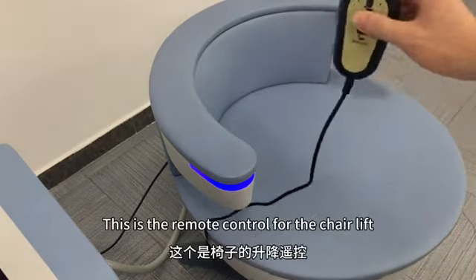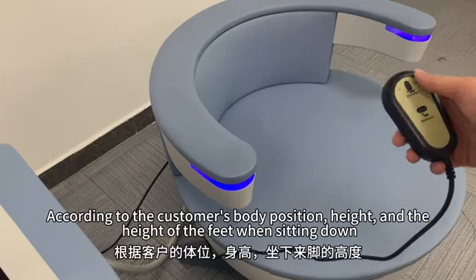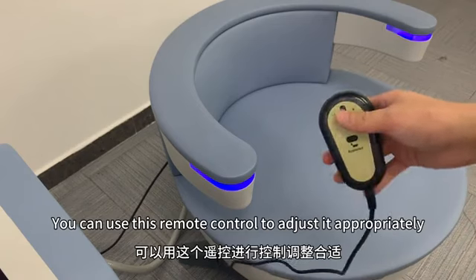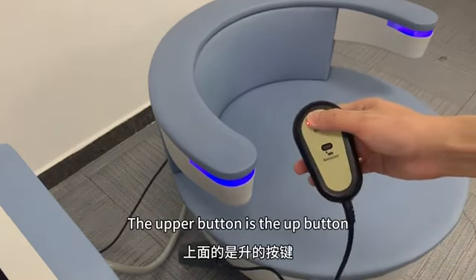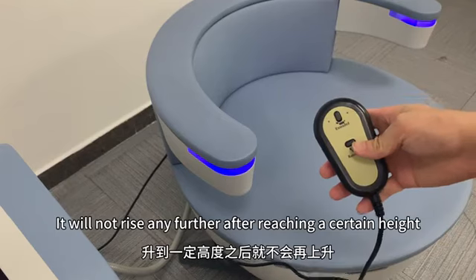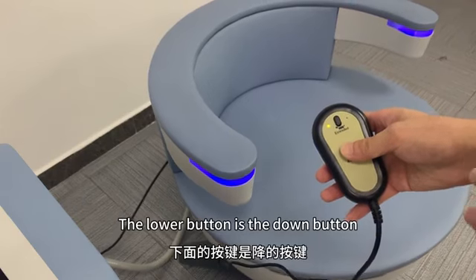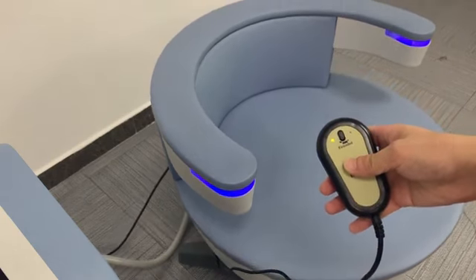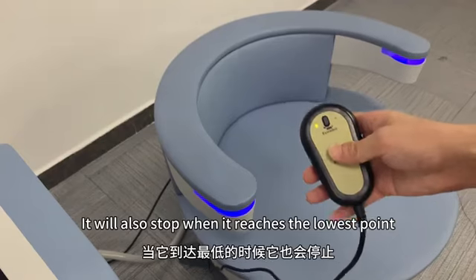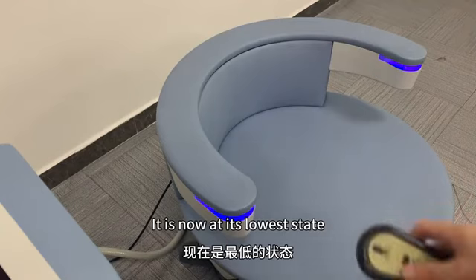This is the remote control for the chairlift. According to the customer's body position, height, and the height of the feet when sitting down, you can use this remote control to adjust it appropriately. The upper button is the up button. It will not rise any further after reaching a certain height. The lower button is the down button. It will also stop when it reaches the lowest point. It is now at its lowest state.